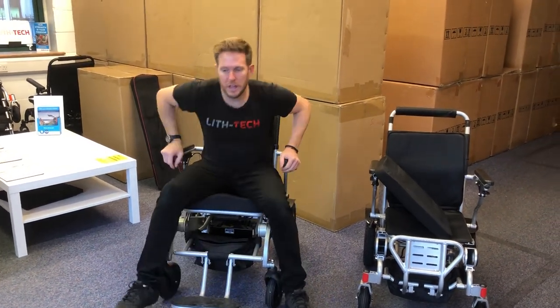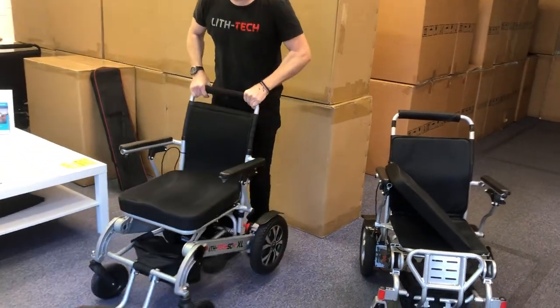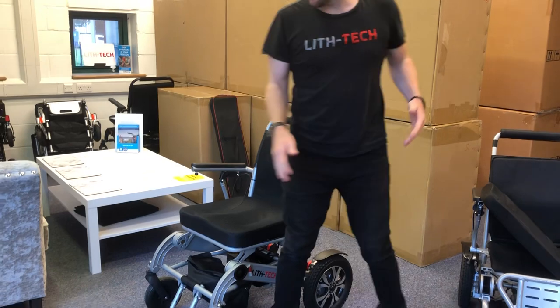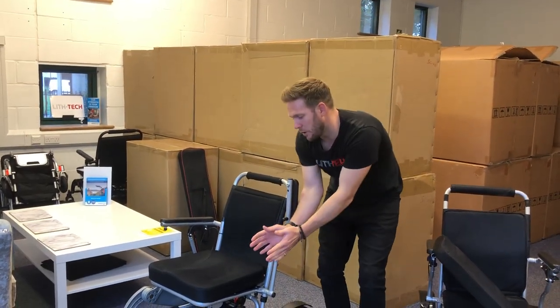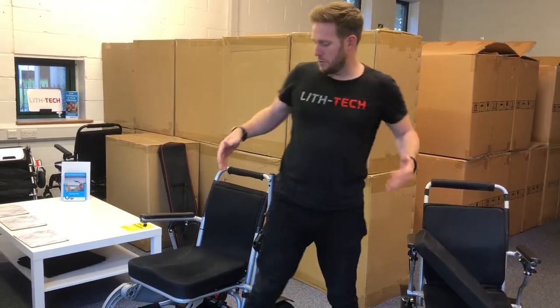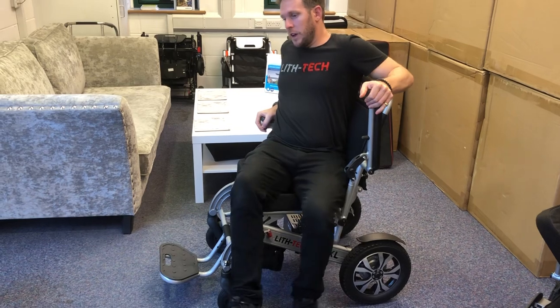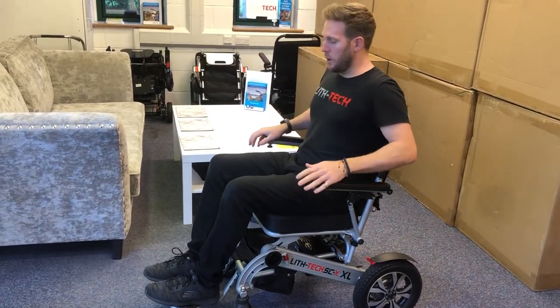Alternatively, the other ways of getting in and out of the chair are from the side. Some people don't realise that armrests go up very, very easily in these style of chairs, which means you can come in directly from the side. This is also good if people are amputees — you can get right up close and do a side transfer. Come in from the side, hold on to the top of the backrest or armrest, sit down, find the other armrest, swing your legs across, and the armrest comes down afterwards.